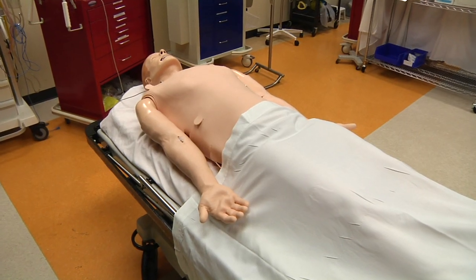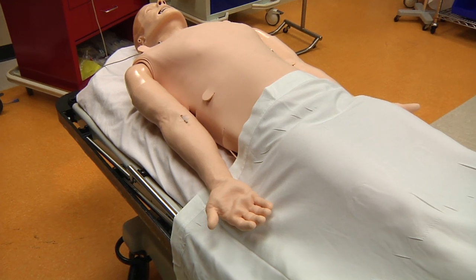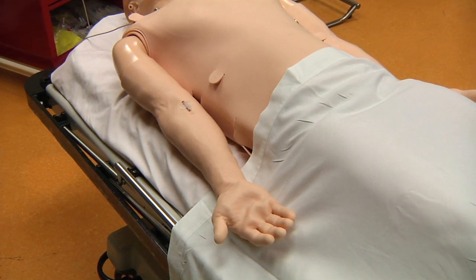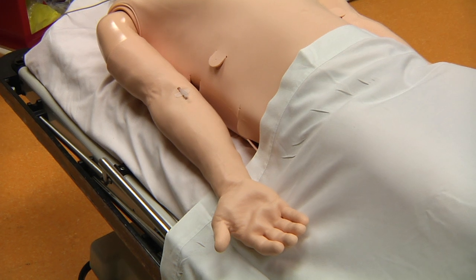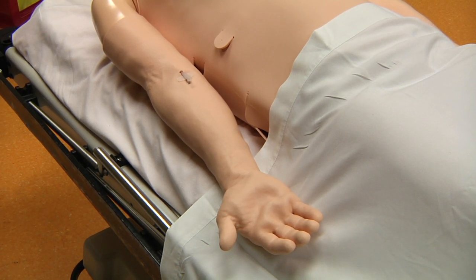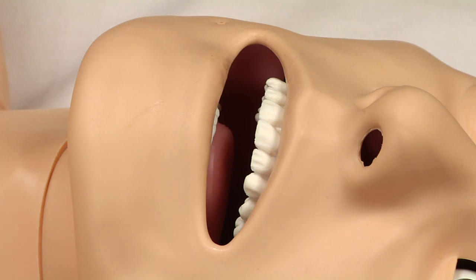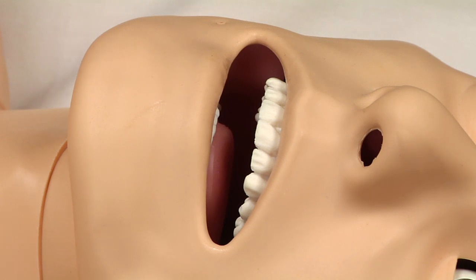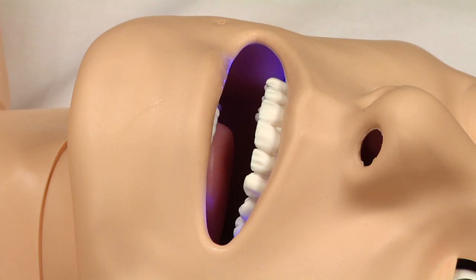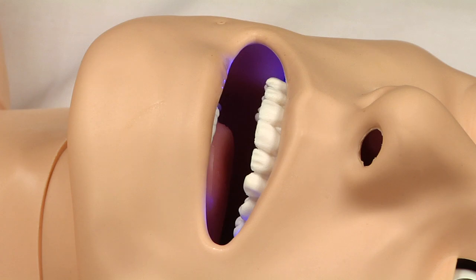The simulator is capable of producing a number of other clinical signs. Both tonic and tonic-clonic seizure activity can be simulated and is visible bilaterally in the mannequin's arm movements. A low oxygen saturation will be noticeable by cyanosis of the lips produced by two blue LEDs inside SimMan 3G's mouth.